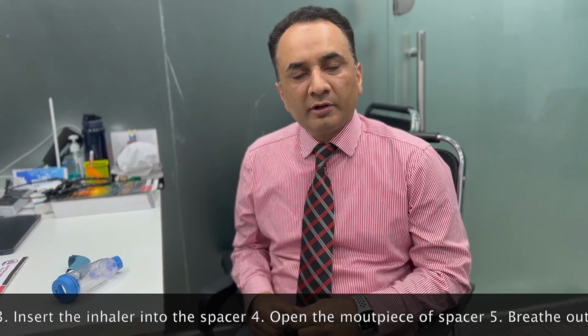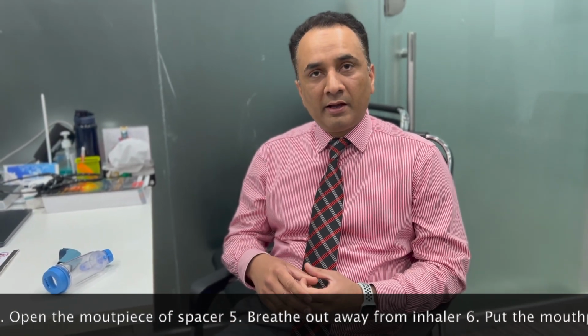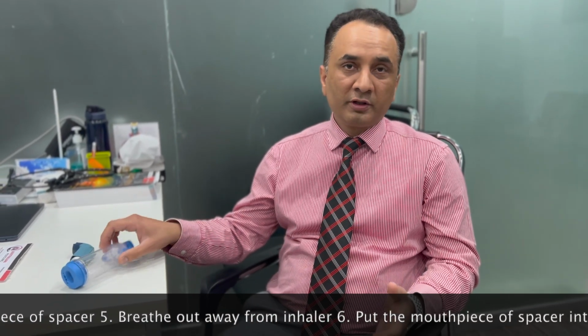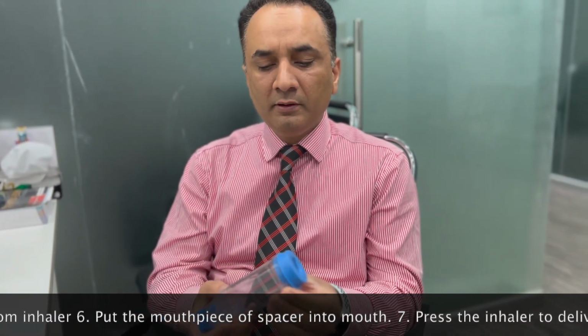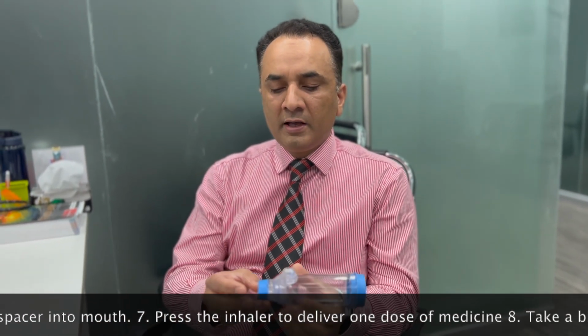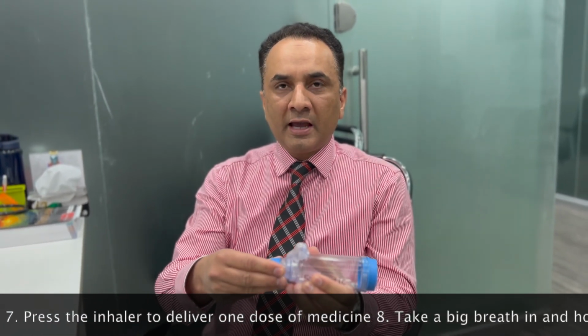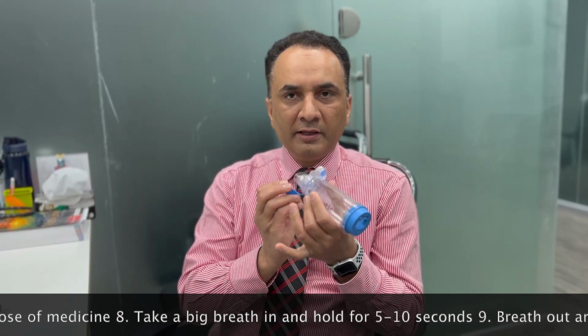So I'm going to demonstrate now how to use an MDI inhaler via a spacer. First, I'm going to show you the spacer. This is one of the types. There are many different types of spacer available. It's got an end where the inhaler is going to fit. The other end is where there's a cap, and if you remove that cap, that sits between your lips.